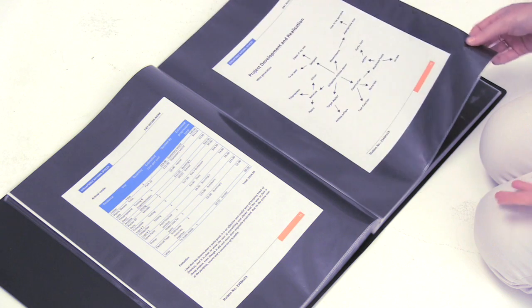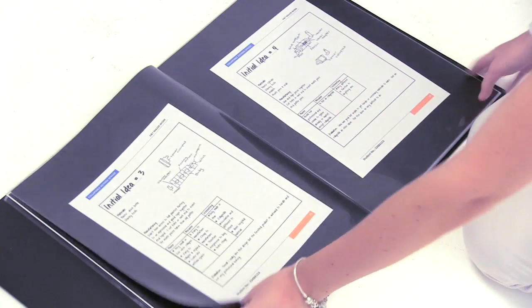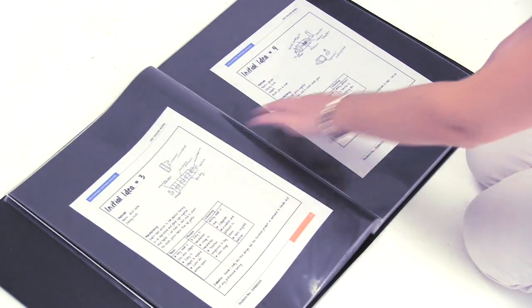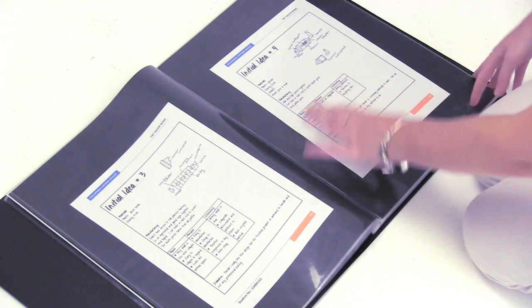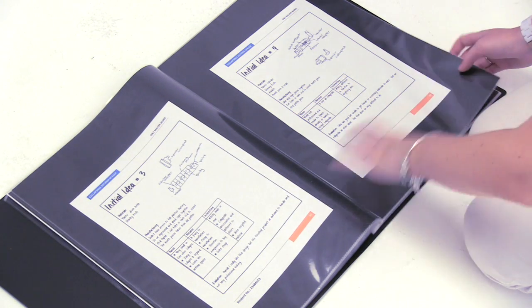Well, it was actually quite hard to make because it was hard to find a way to make it collapsible. I went through lots of different prototypes and drawings and models on the computer. Then finally we came to the idea of how collapsible cups would work very well for it, and we just made the ends and put it together.